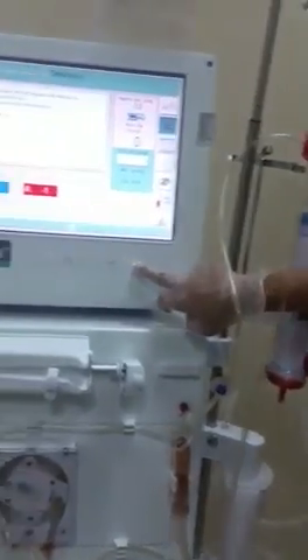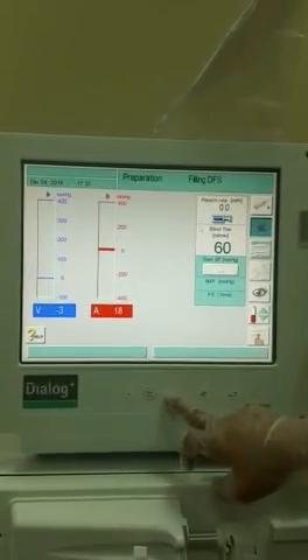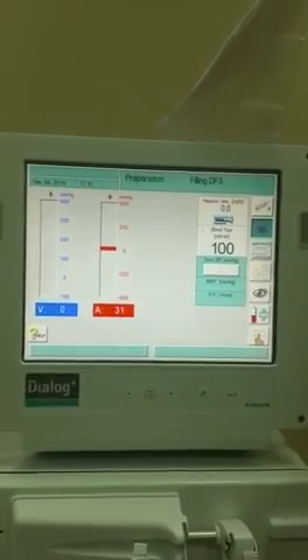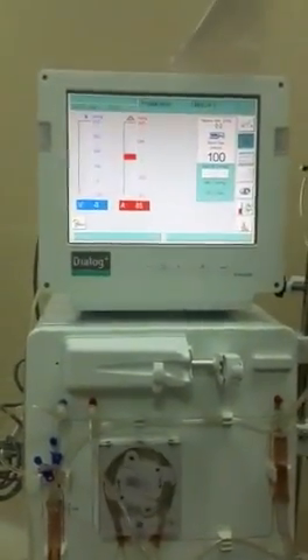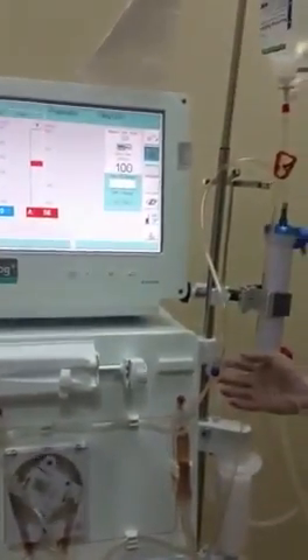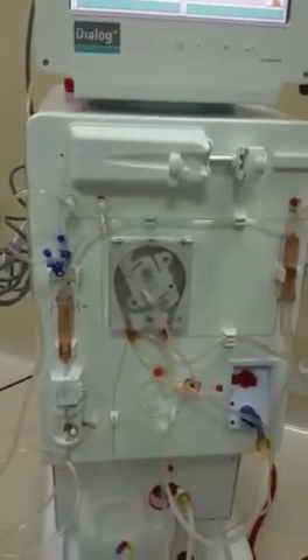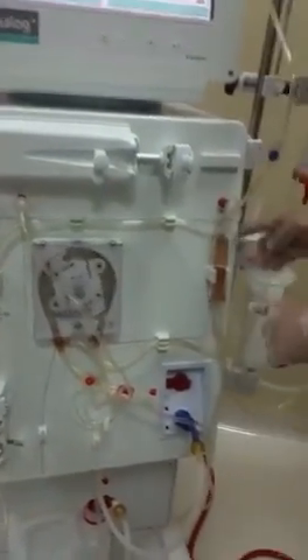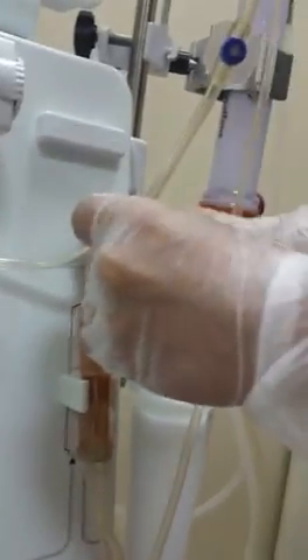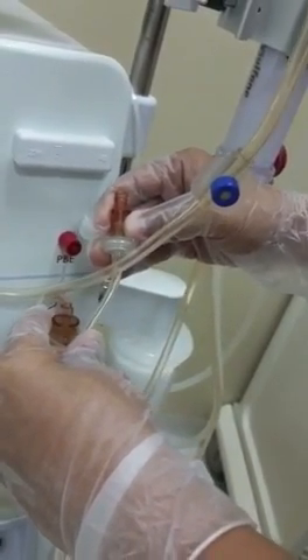After that, we will acknowledge by pressing the orange colored arrow. Then we can start priming by pressing the plus button, then click the button. The tube will kick from here while slowly releasing and we will fill it half-full.